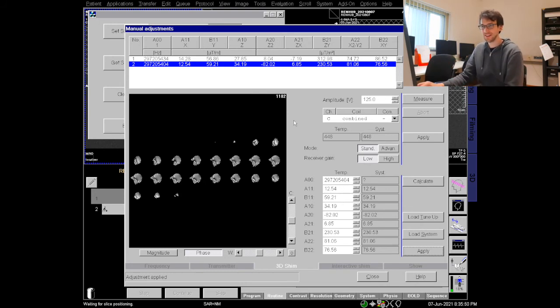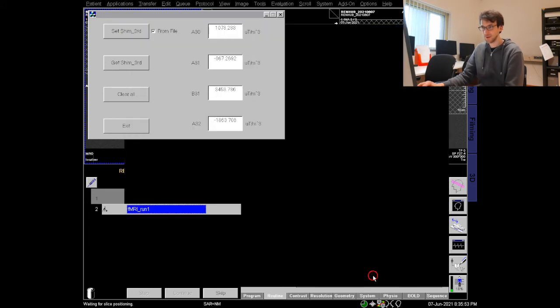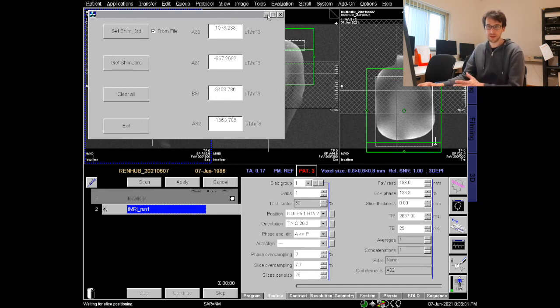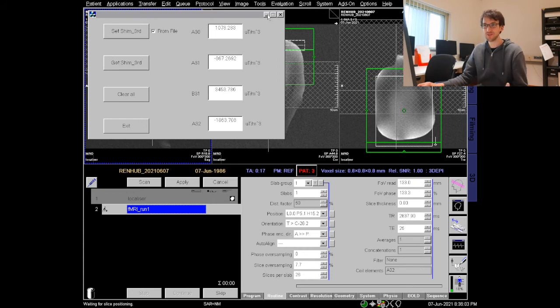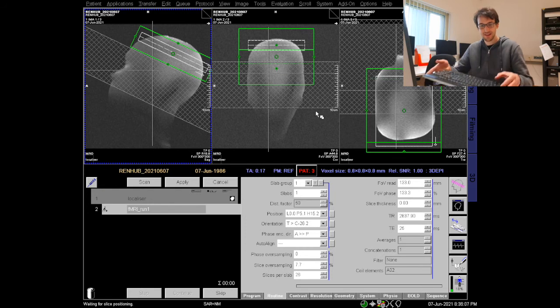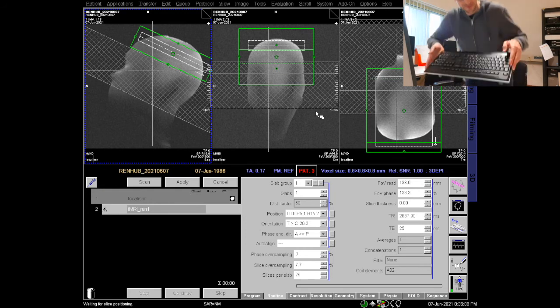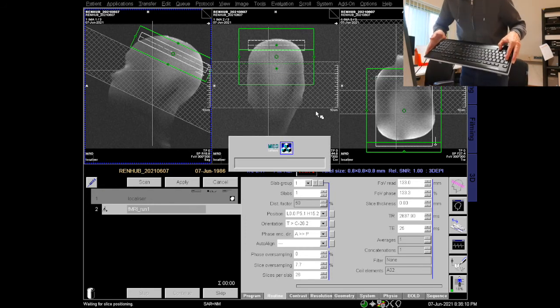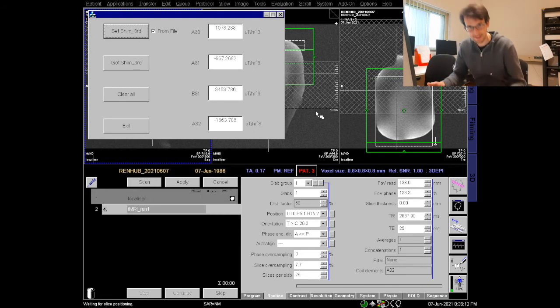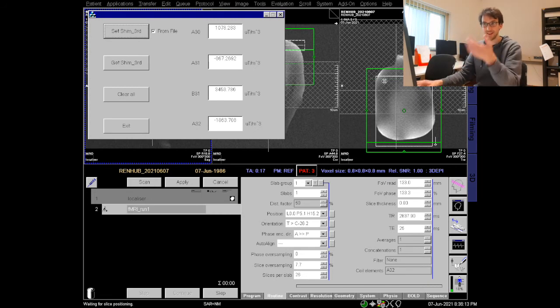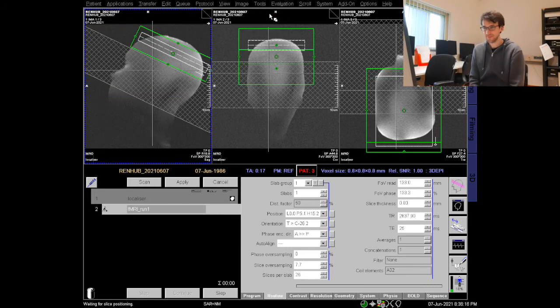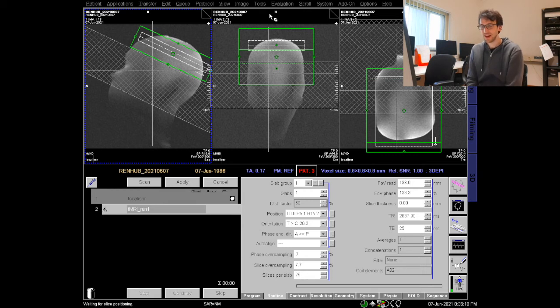Now I can close this little manual adjustment window. I do not want to close this one over here, I want to minimize it. If I close it it will warn me and it will not work properly so I minimize it. If you ever want to get it back you can get it back with the control tab key where you can select the little window again and minimize it if it annoys you.